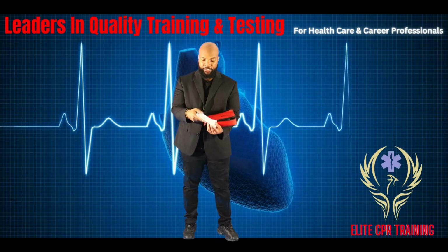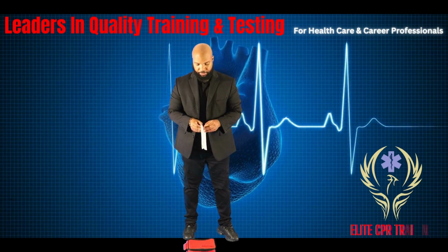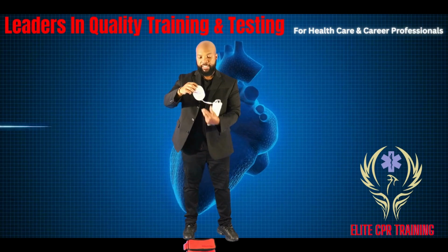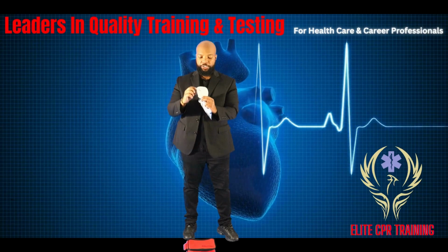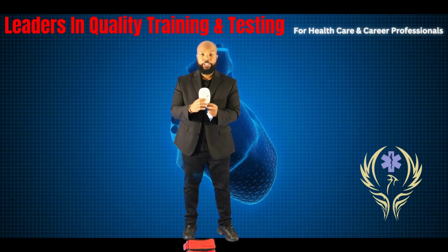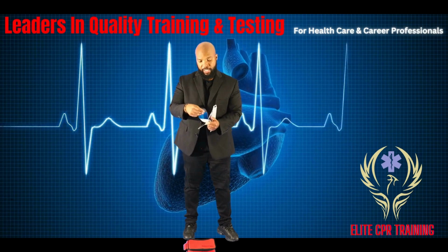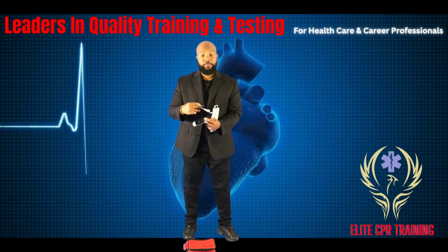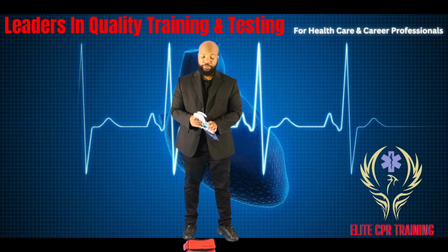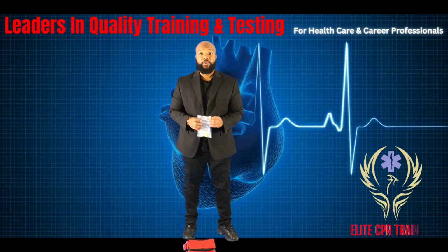So we're going to go ahead and turn on the AED. We want to remove the pads. And as you can see, right over here, it shows you on that patient's right, that patient's upper right, and then you're going to put it on their lower left. You will peel off the sticky backing and apply it directly to the upper right and lower left of the patient. After you turn on the AED, you apply your pads, you listen to the prompts, and then you wait for the shock.